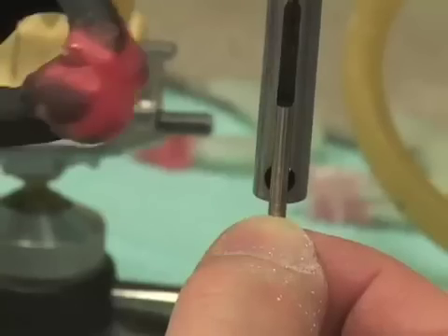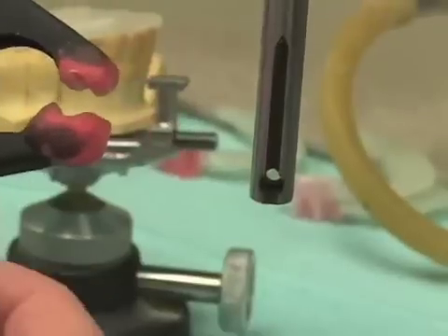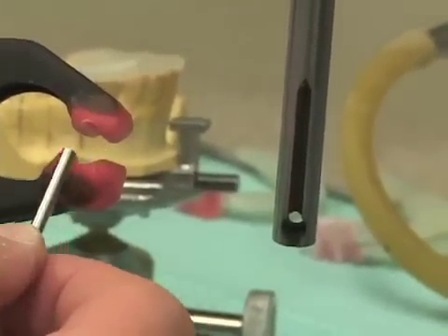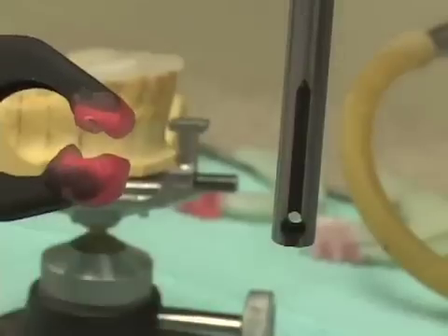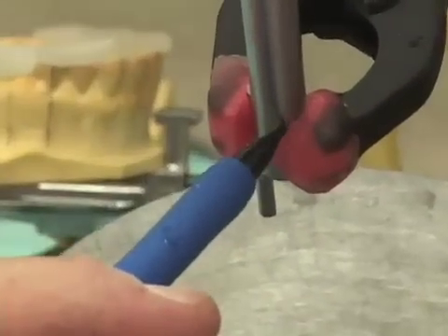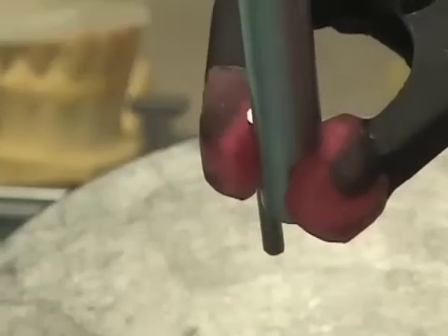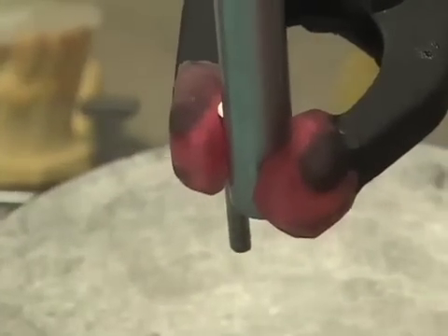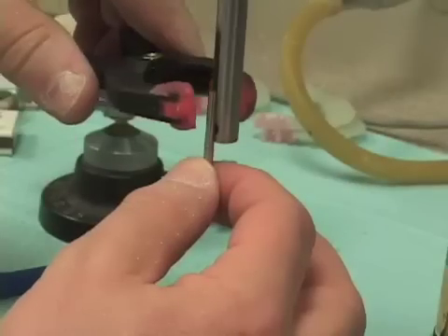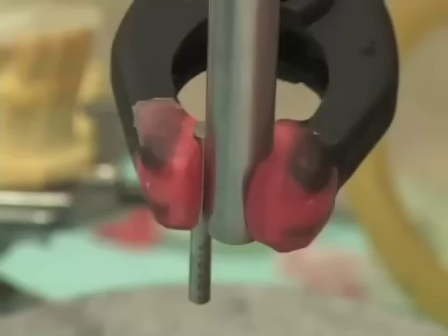I have fabricated this spring clamp. When the jaws are slightly open, you can see that one side has triad gel placed and cured on it, giving it a slightly larger radius than the other side. One arm fits the vertical spindle of the surveyor, and the other arm is set up to very nicely grasp the larger drill blanks and simply clamp them in place.